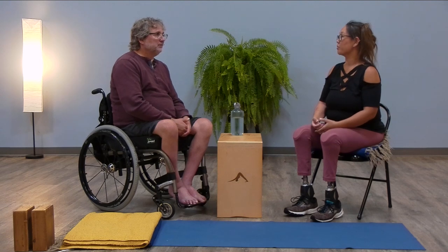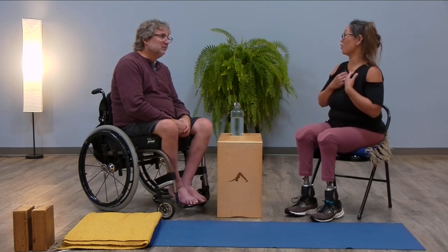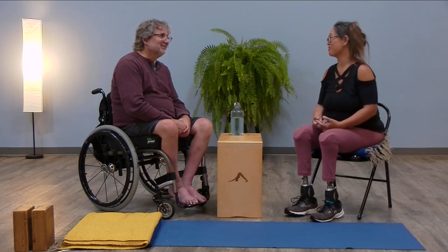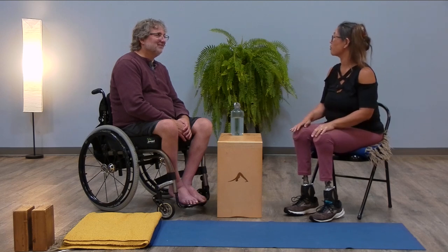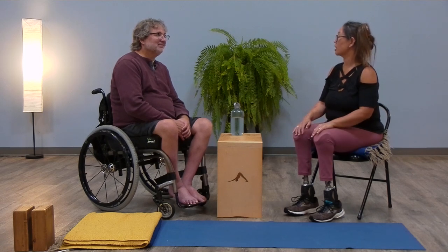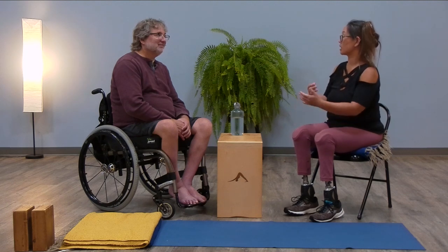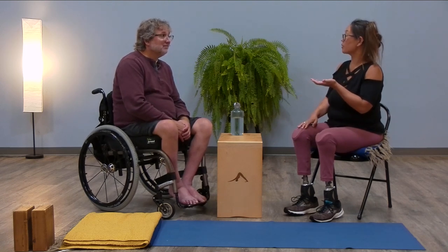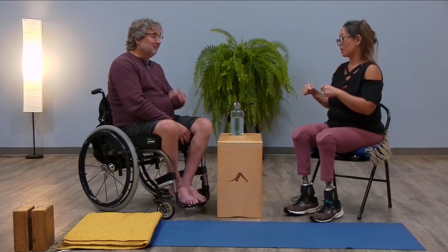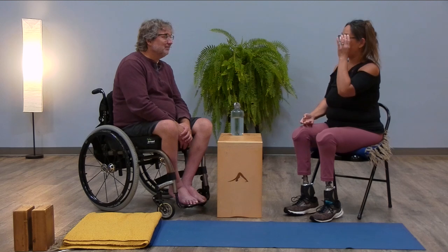Getting fit for a new pair of prosthetics, it's a little bit of a crapshoot every time. You kind of don't know how a particular limb is going to fit. You always hope it's going to be great the first time, though that's not usually what happens. The last couple sets I was in, I was having more trouble with my knees, more trouble with the tibia and the fibula distally on both legs. One of the prosthetics was a little bit short — it felt like the actual length of the prosthetic socket was a little bit short, which can happen in fabrication when they take the wire rasp and run over the plaster model a little bit too much, which raises and shortens it.